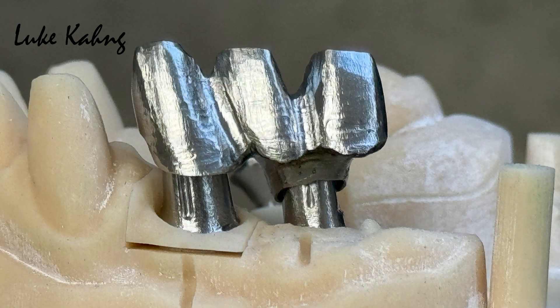All cleansability tools are considered. In this case, we fabricated a frame design we call Cytin Mini 7 Star. What Cytin 7 Star means is our own product, which we developed a long time ago. We have fabricated many full mouth cases throughout the USA.